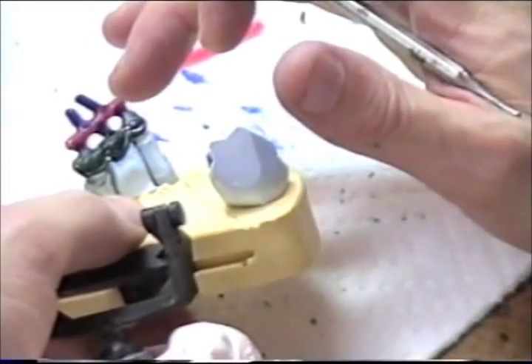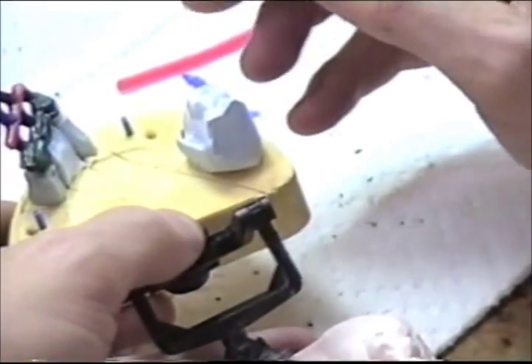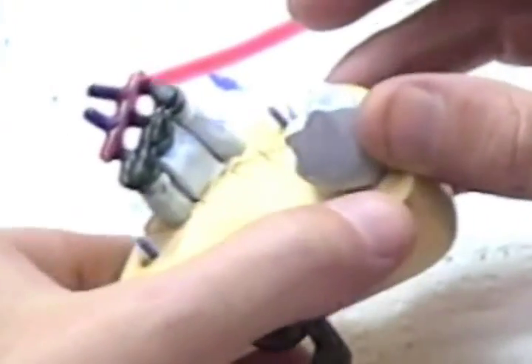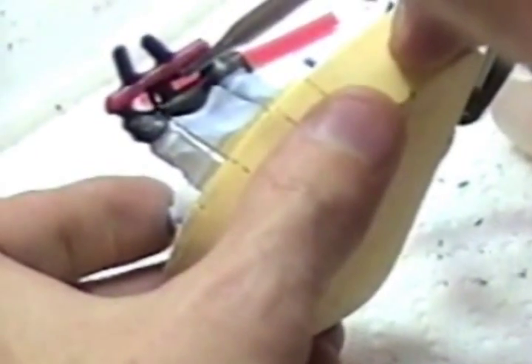After I've sprued the indirect bar here, I'm going to go ahead and flow wax now into this joint making sure that the wax will flow all the way through. I'm not going to get my instrument so hot that it will distort everything here around the cut that I've made, but it will go right into the middle and then I'll turn it around and do the same.